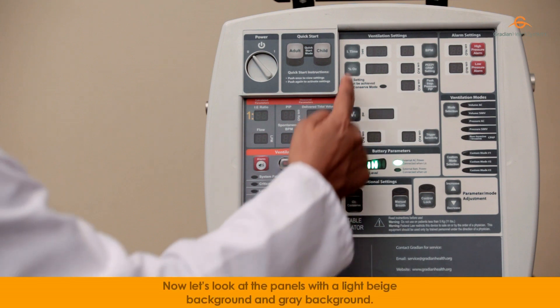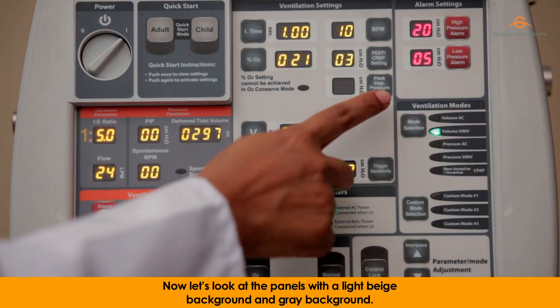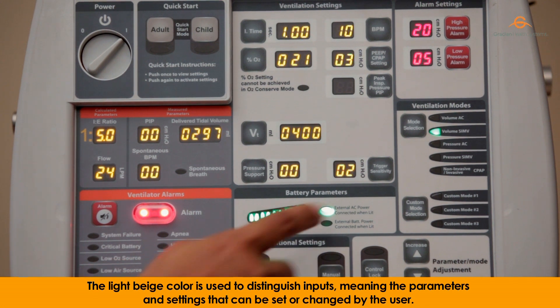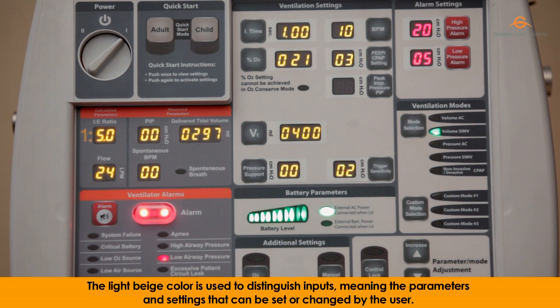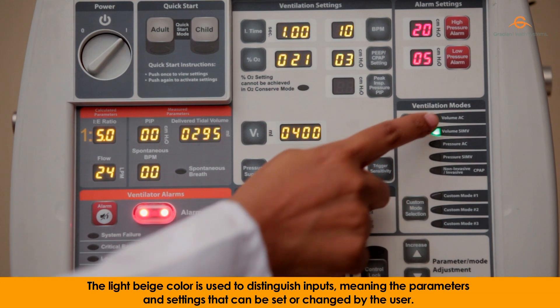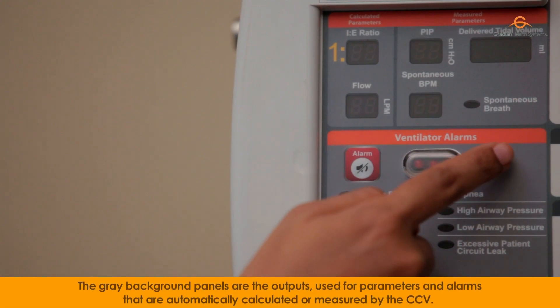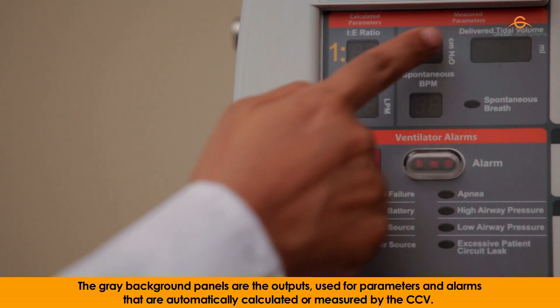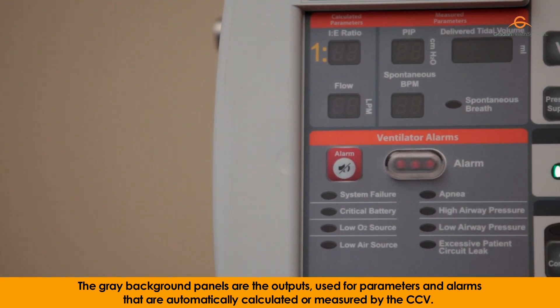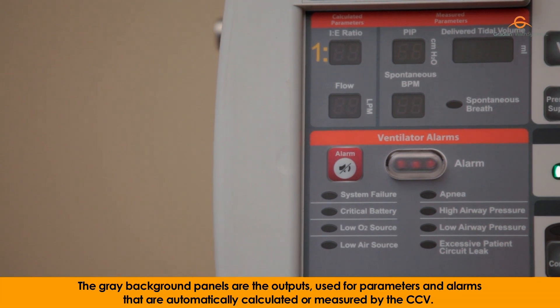Now let's look at the panels with the light beige background and gray background. The light beige color is used to distinguish inputs, meaning the parameters and settings that can be set or changed by the user. The gray background panels are the outputs, used for parameters and alarms that are automatically calculated or measured by the CCV.